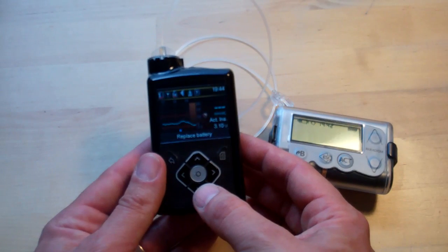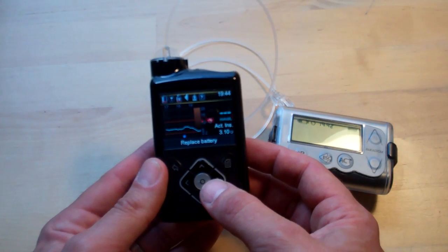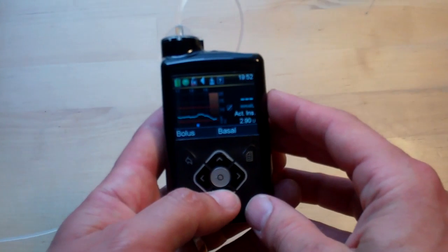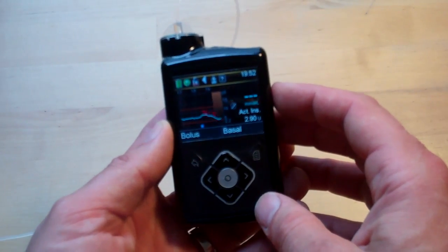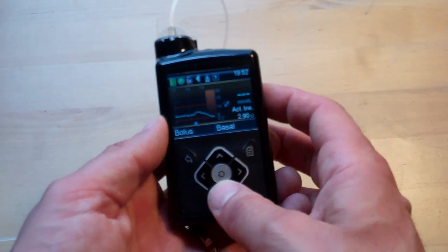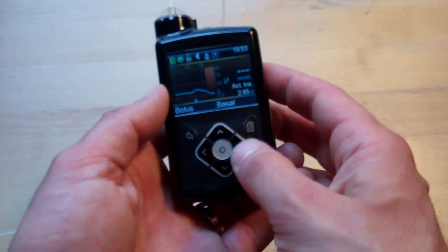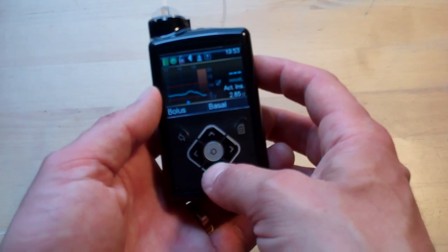If I just flip the screen on — I've got a low battery alert. There you go, all fully batteried up again. It's not bad battery life actually — I get about a fortnight out of a battery. That's with powering the sensors and checking the screen a lot, obviously looking at the graphs and so on. Powering the screen will take a lot of juice out of a battery, so I think a fortnight's not so bad.